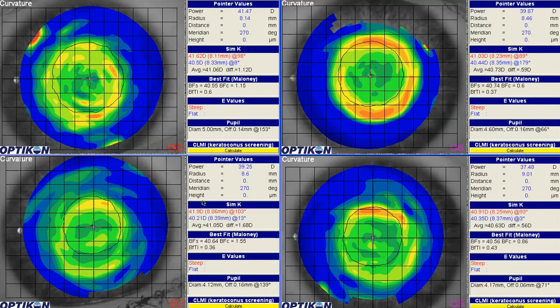And I believe the question is if we want to make some changes to the design of the lens, should we start with previous lenses or start over? And I believe there was some updates to WAV in between the current time and when the lenses were first designed.